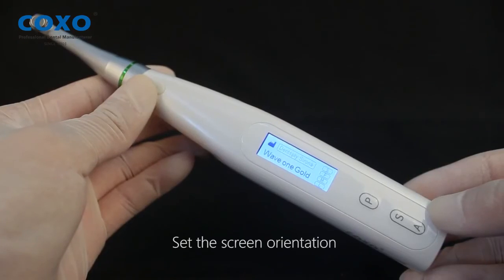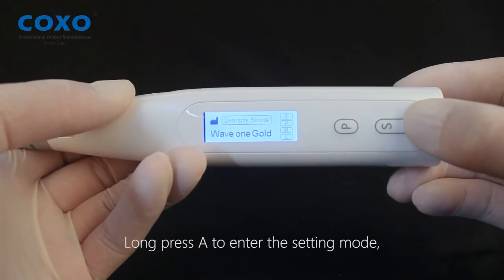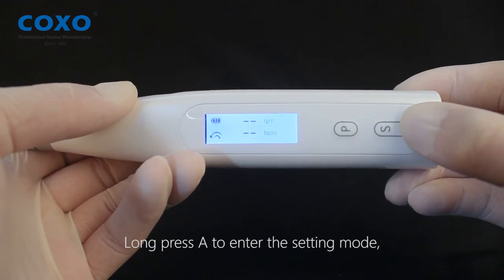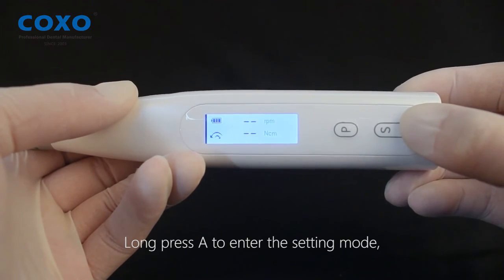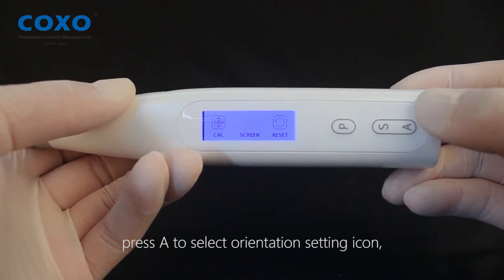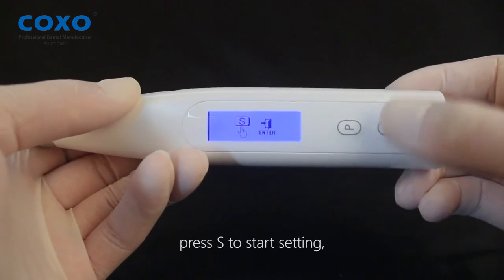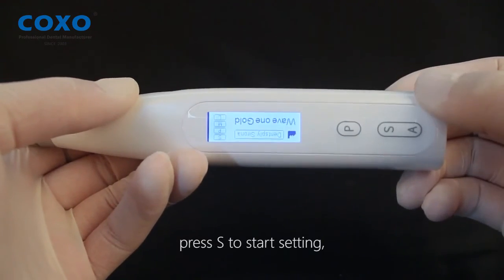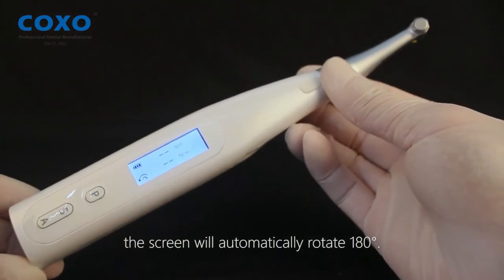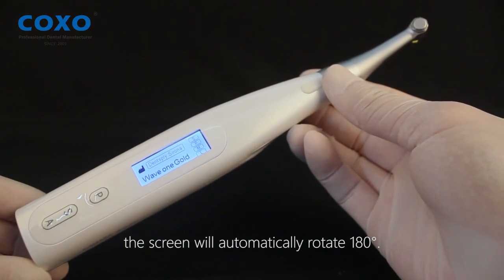Set the screen orientation. Press A to enter the setting mode, then press A again to select the screen orientation setting icon. Press S to start setting — the screen will automatically rotate 180 degrees.